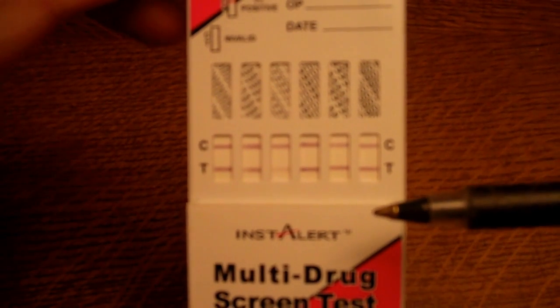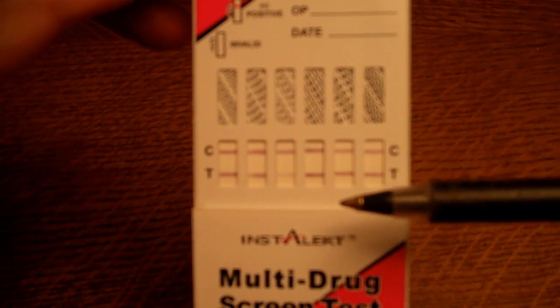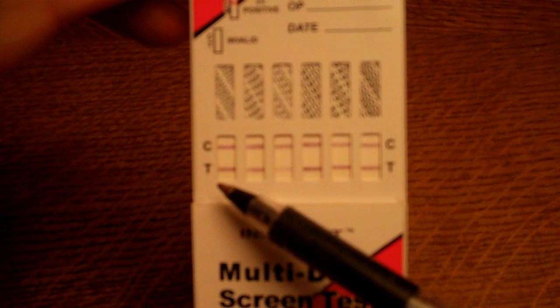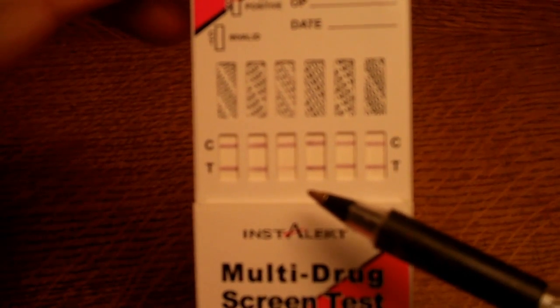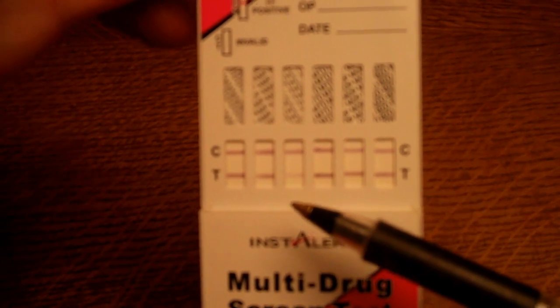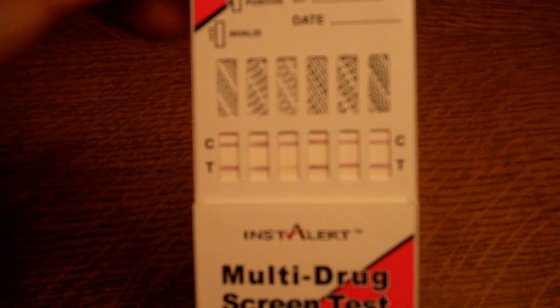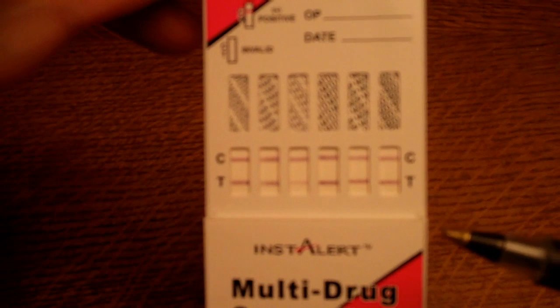When we interpret this panel results-wise, you can see we've got pretty clear test lines showing in five of the six windows — a clear negative result for COC, amphetamine, methadone, opiates, and benzodiazepines. But when we look at the test line formed in the cannabis THC window, you'll see that the test line is both very much fainter and in some places thinner than the comparable test lines in all the other windows.